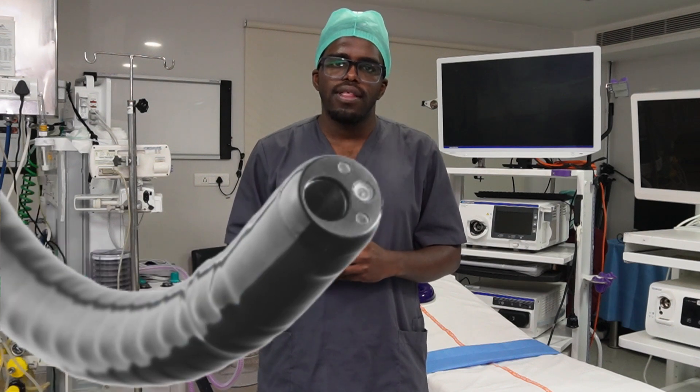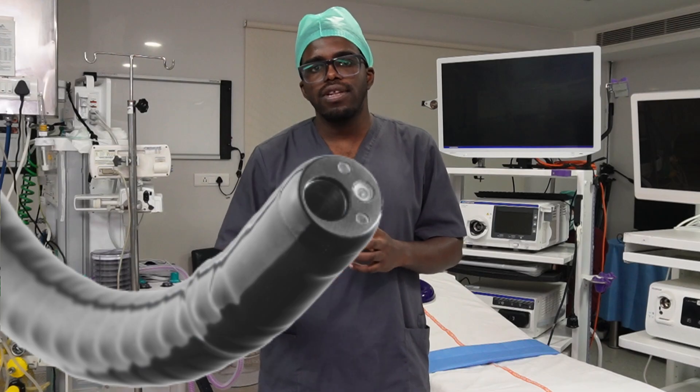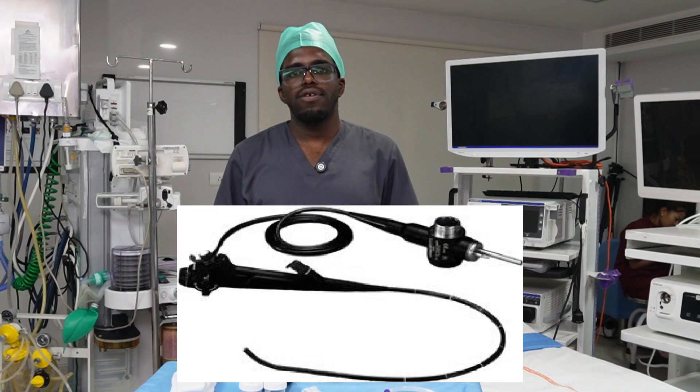This is made possible using a thin tube called a bronchoscope. The bronchoscope contains a camera and light at the distal tip, which allows direct and clear visualization on a screen in real time. There are two main types of bronchoscopy.